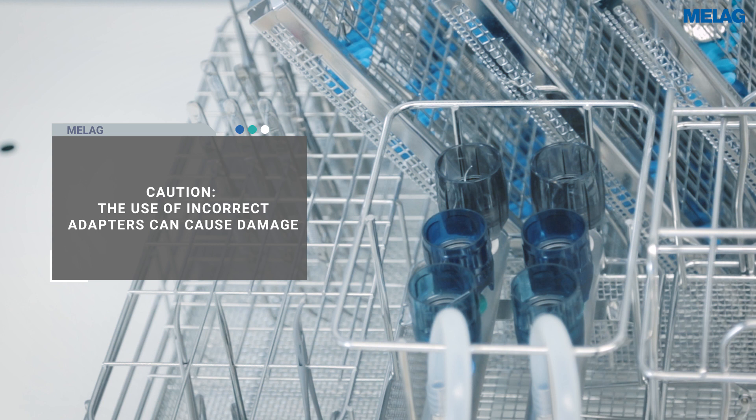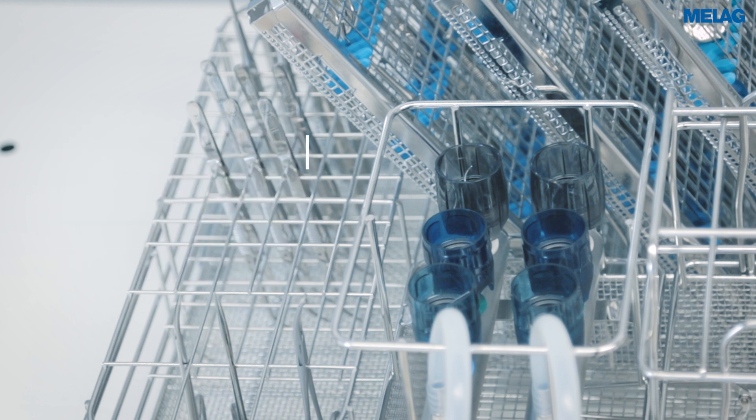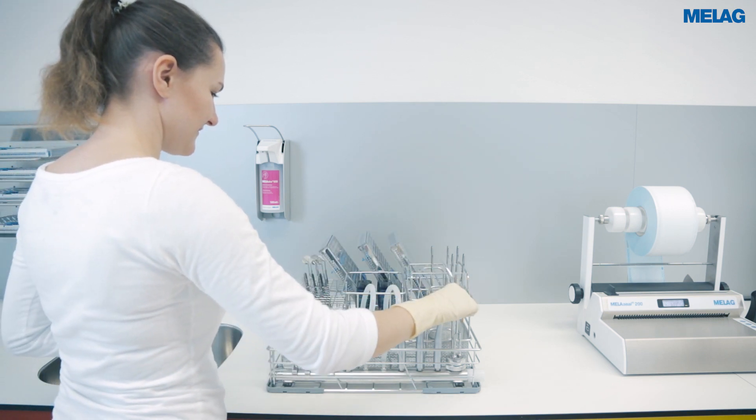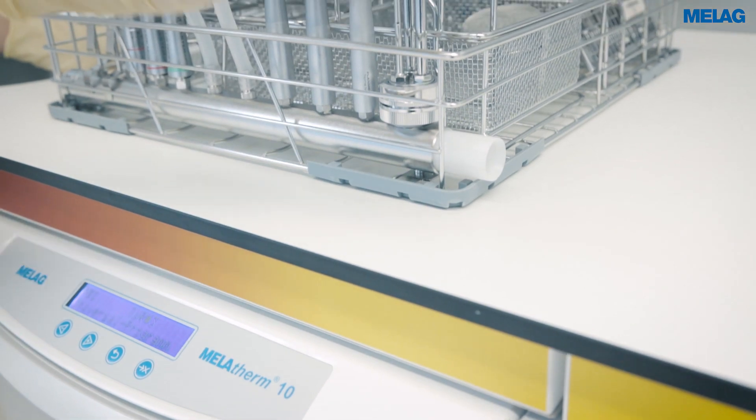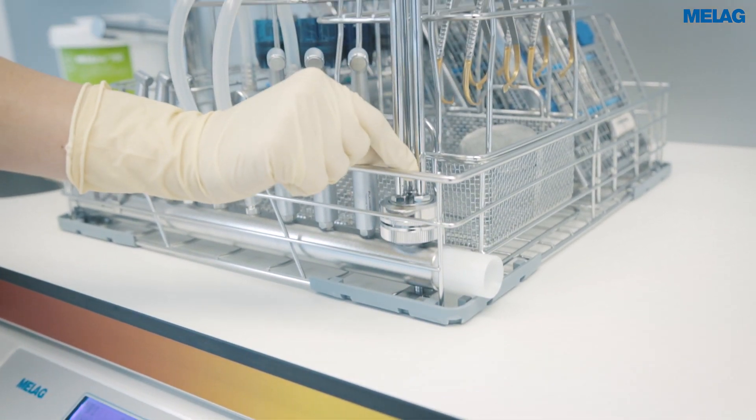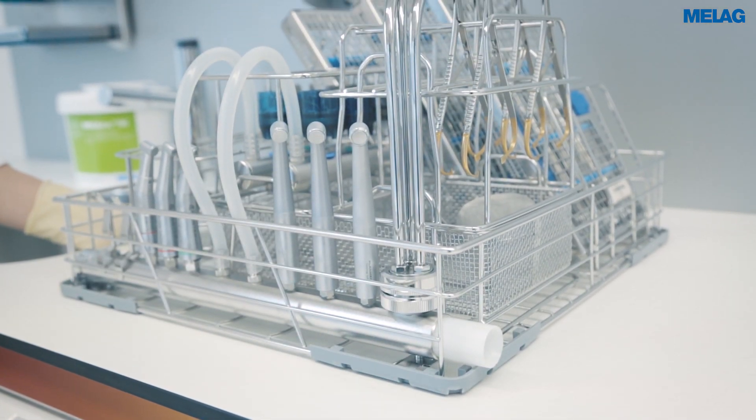The narrow inner diameter of surgical suction cannulas means that they should be placed on an injector nozzle. Where necessary, the number of injector nozzles can be increased through the use of a triple distributor.